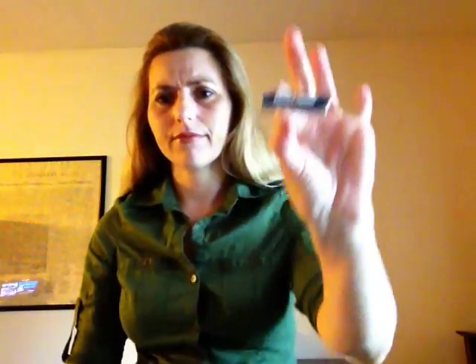There are several — not many, but some — stethoscopes called electronic stethoscopes. They are electronic because they use batteries, a regular battery, something like an AA battery. I will show you.